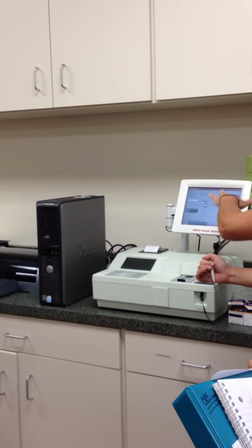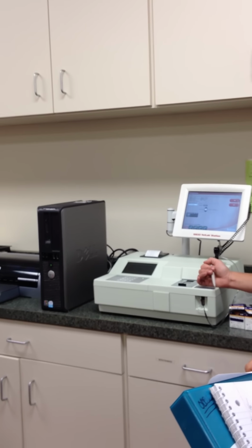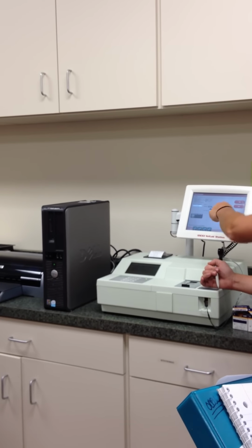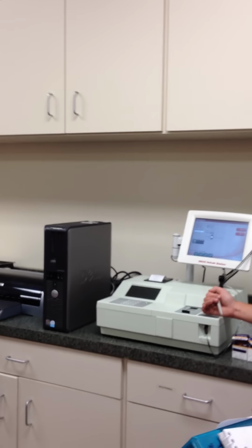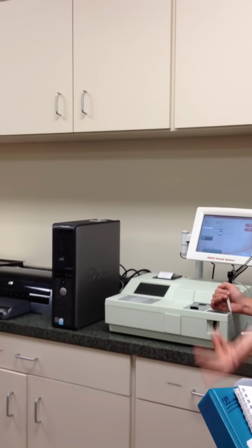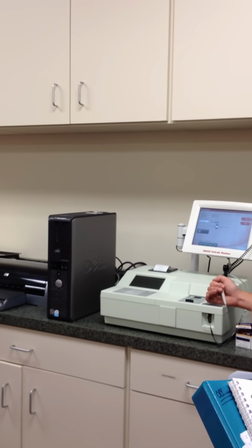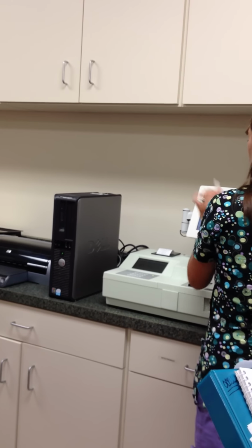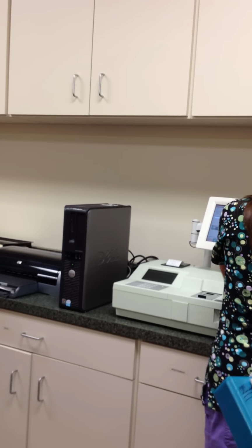And then you're going to note what your diluent is. Okay, so if it's 1 part your diluent to 1 part your blood, you're going to put 1 to 1. If it's 2 to 1, you're going to do your 2, so on and so forth, however you need to dilute it. Okay, that allows the machine to recognize and give accurate results and numbers once it spits out the results. Okay? All right, so we are not diluting, so we're going to hit our run button here.